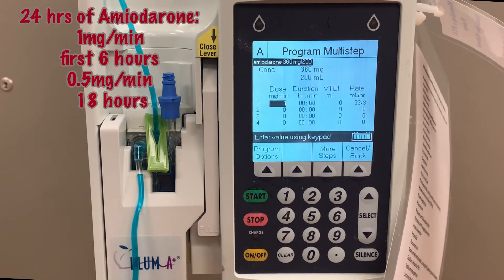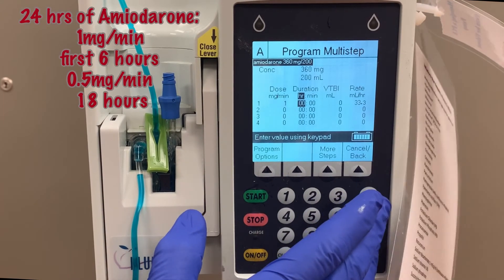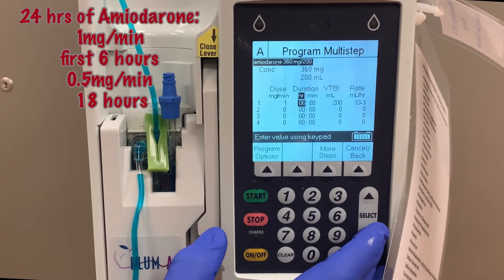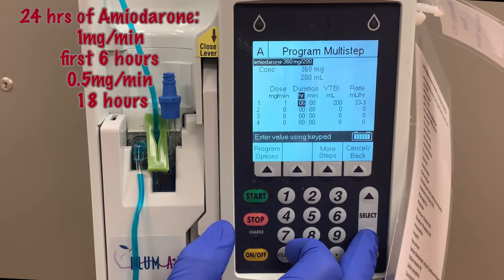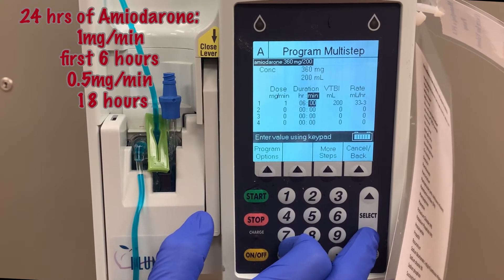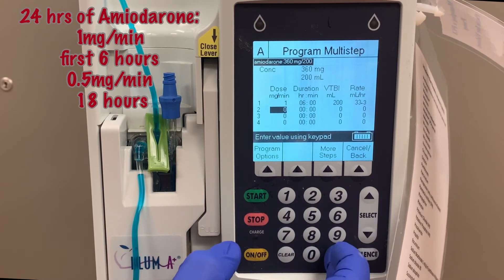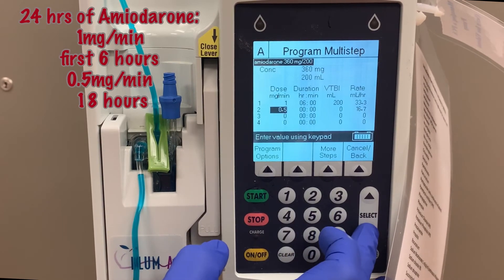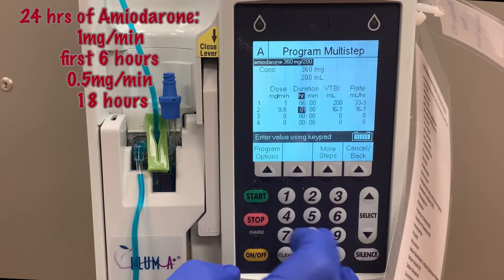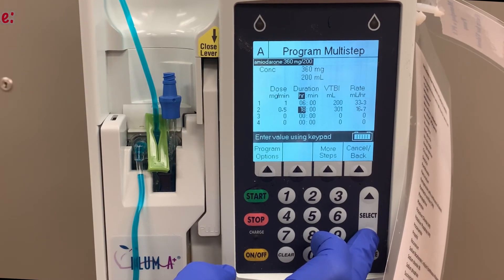When programming the multi-step program, the number one dose is the first dose that you initially want the medication to run at. In this case, we want one milligram per minute for a duration of six hours. This will fill in the volume infused and the rate, and then we go to our second dose, which is 0.5 milligrams per minute for 18 hours, which will also auto-fill your volume to be infused and the rate.